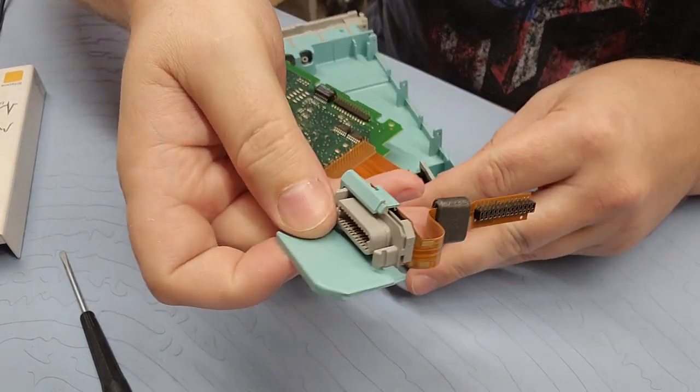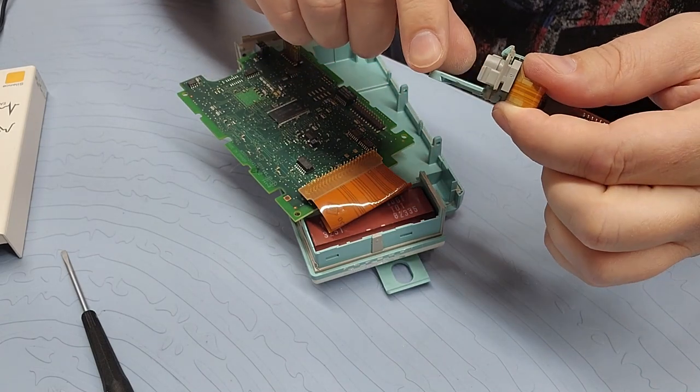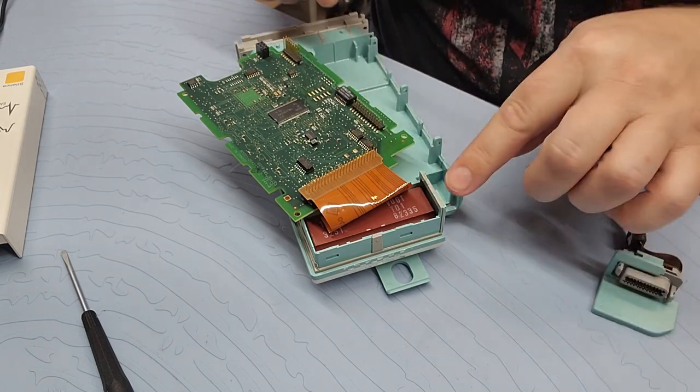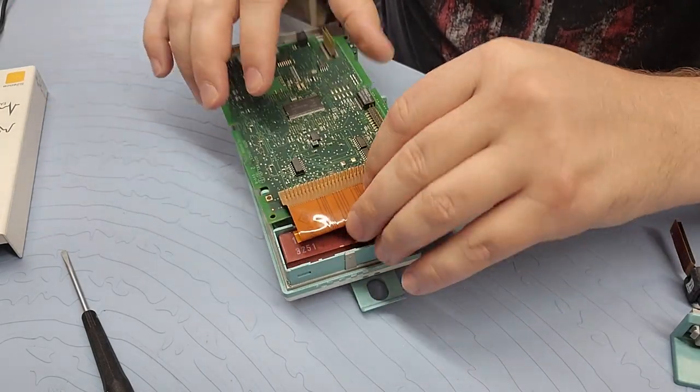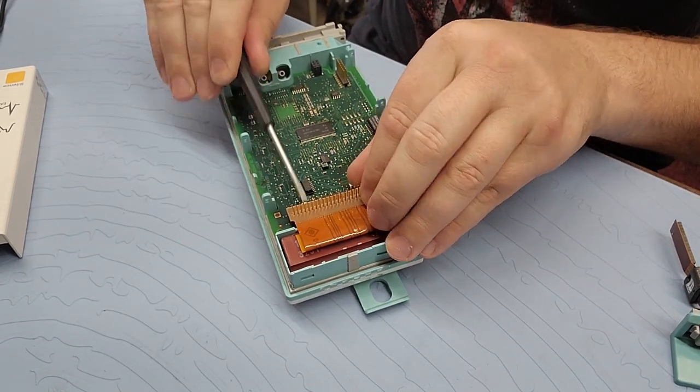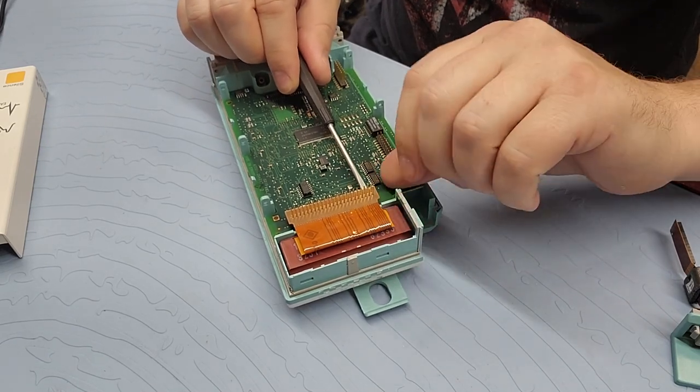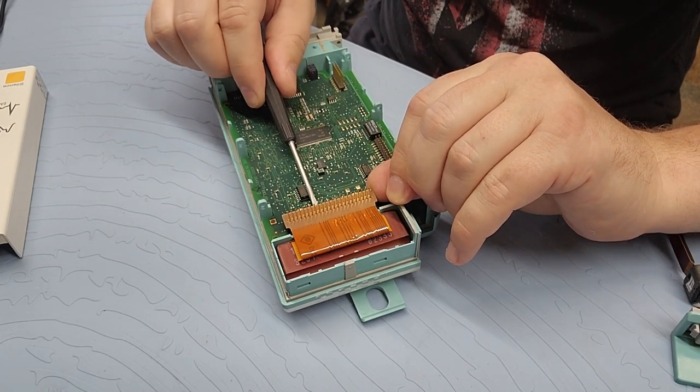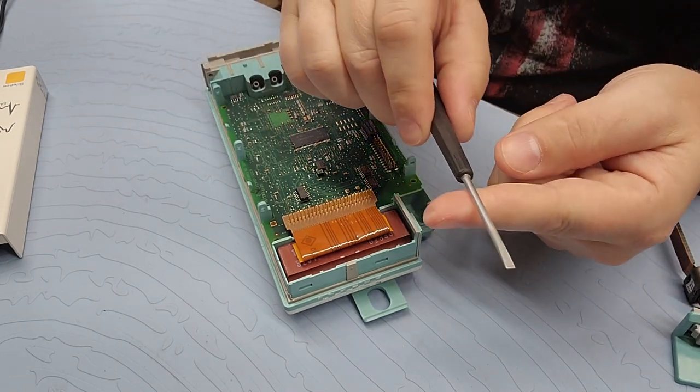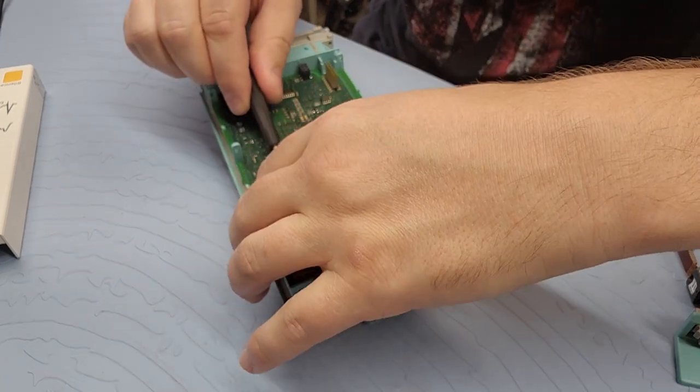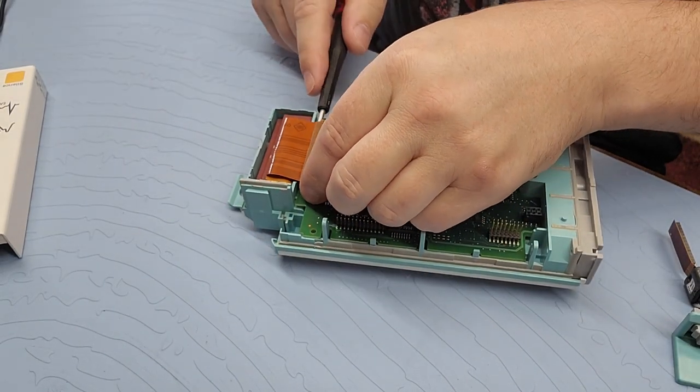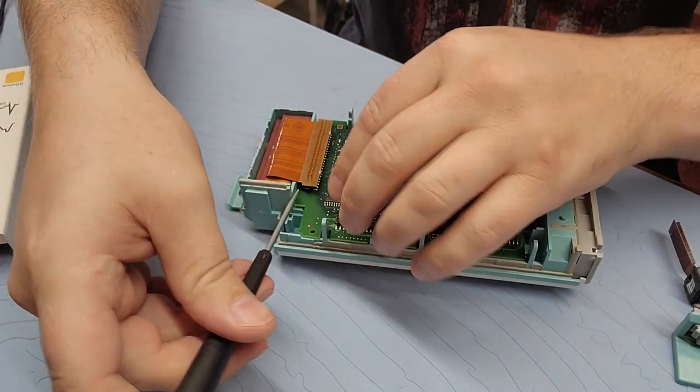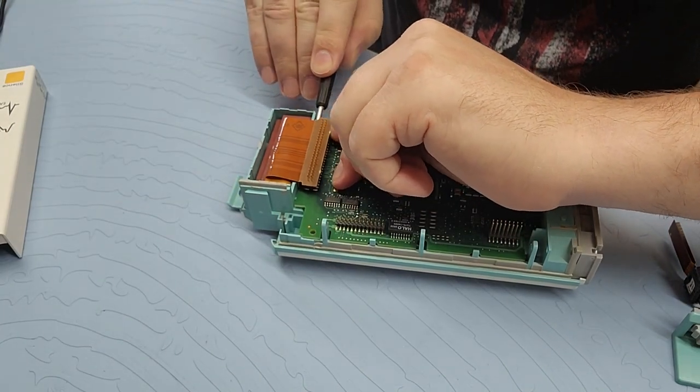So, one of the most common repairs that you're going to do is changing this guy out right here. It's got a dovetail right there. You can see it. It just slides on. Right here is the male dove. It's the female. And let's see if I can get this port right here out. Nice and easy. So, because these pins are all linear, you got to just be very careful to make sure that you apply even pressure down the port. The way I do it is I stick my screwdriver down there and I rock it just a little bit. You're talking a millimeter to half a millimeter at a time.